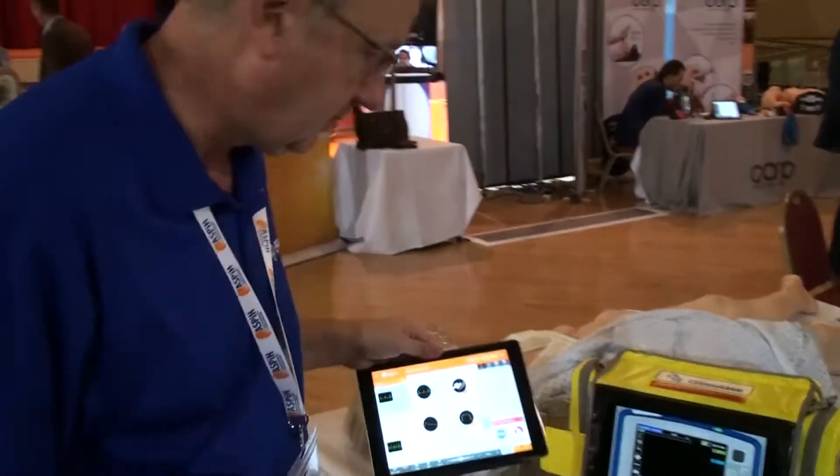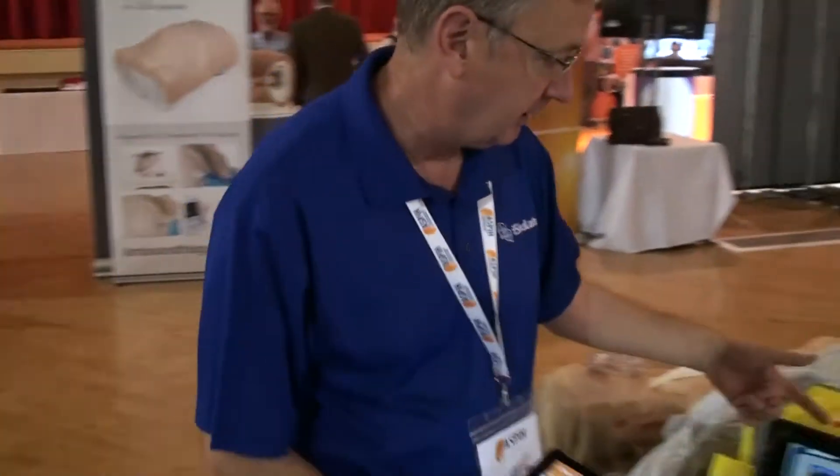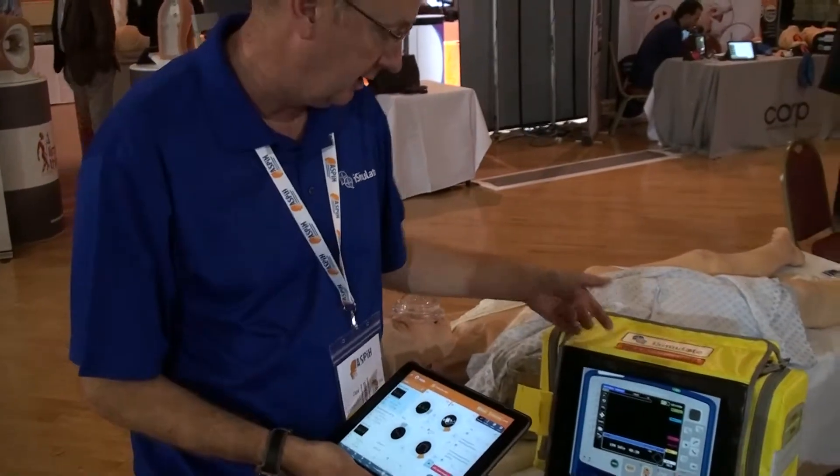This is the latest version of iSimulate that you can see up on the board here. It's one iPad controlling another iPad using Wi-Fi.